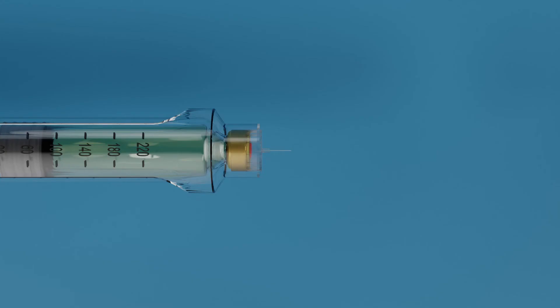Reattach the outer needle cap and remove the needle. Never reuse and share the needle. Instead, dispose it off immediately.